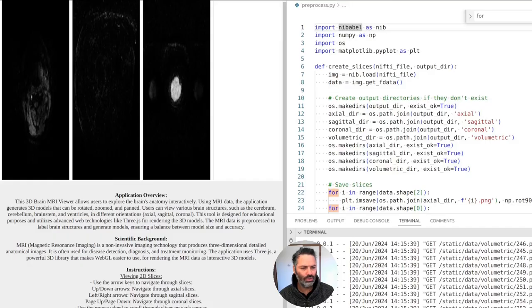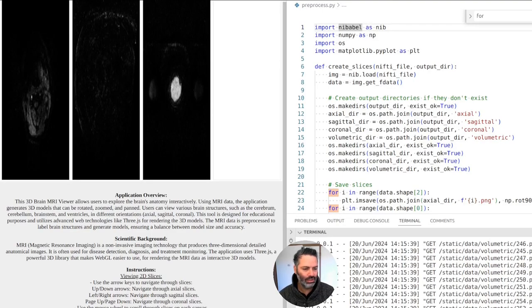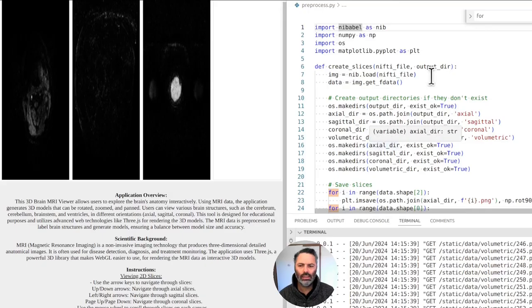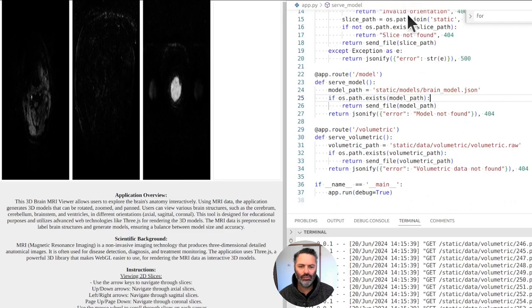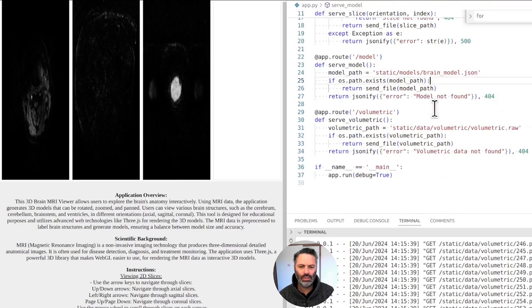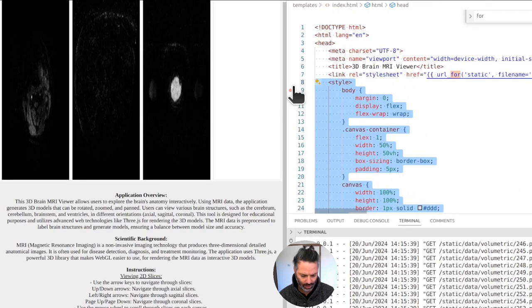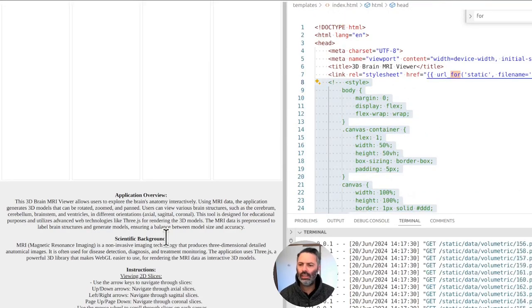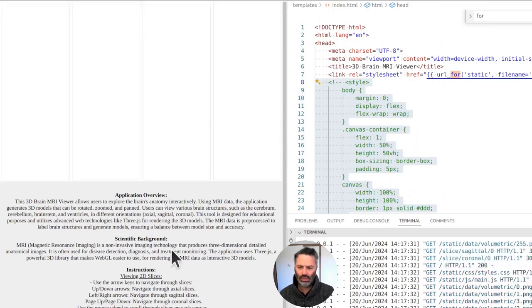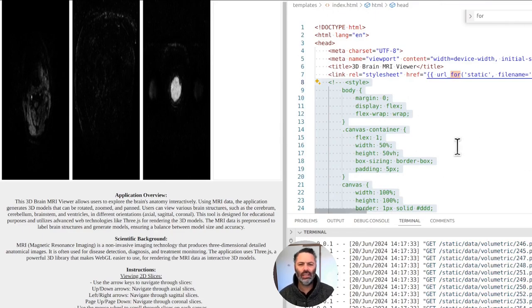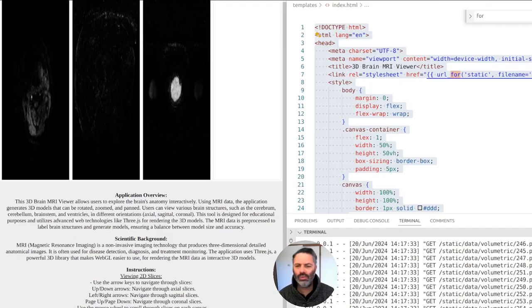The imaging script creates slices before saving. The script assumes the input 3D data is not more than three dimensions. The data is not more than three dimensions. Can we get rid of some of this styling for a second?